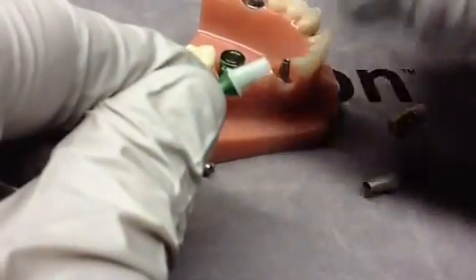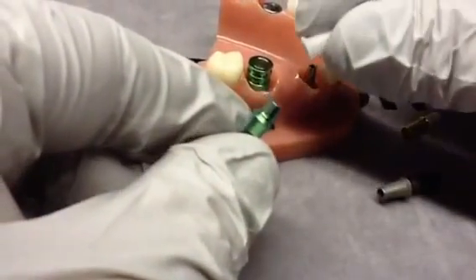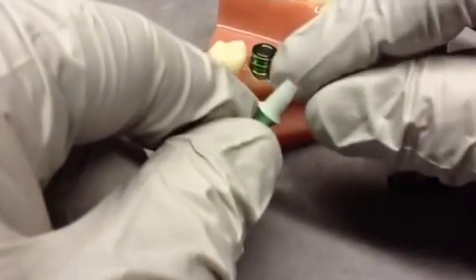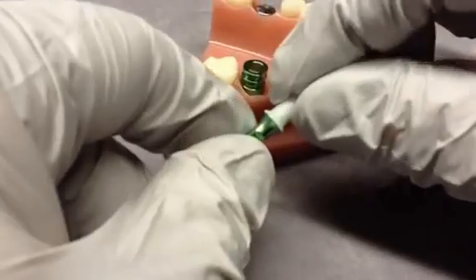The Eton analog and burnout coping are the exact same size as the abutment. We use 100% virgin Delrin material to make the burnout coping, and between the material and the idea of having the analog be the same size as the abutment, it's a very precise fit between the two components.